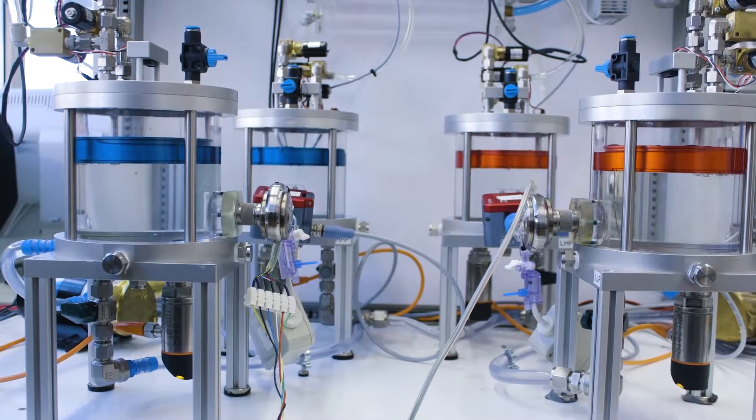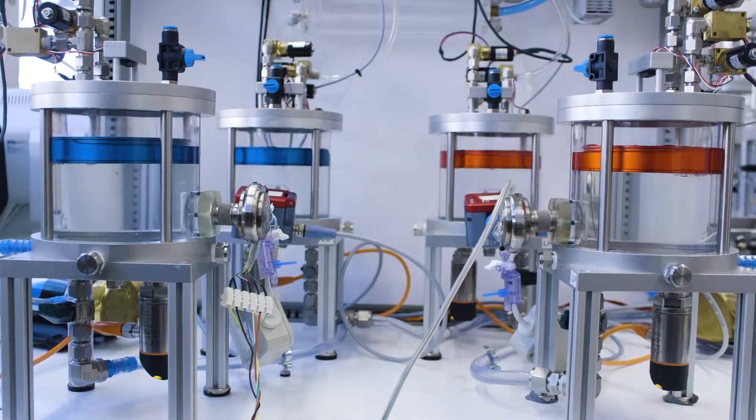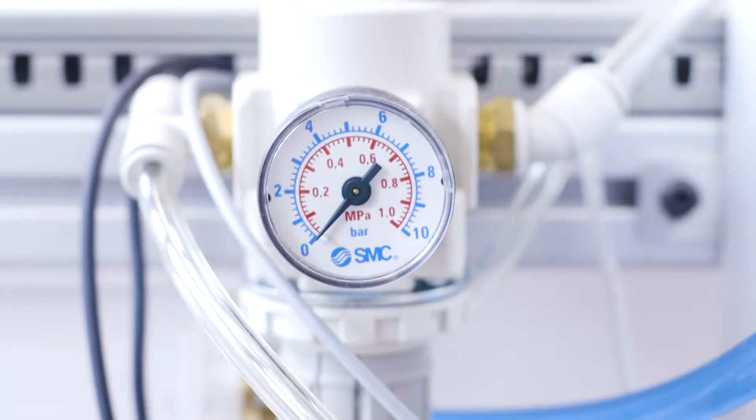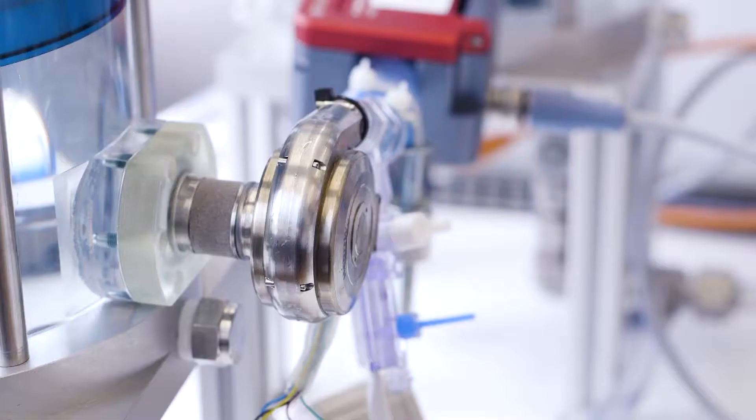Cardiovascular implant development requires testing facilities to assess design criteria of implants under realistic and reproducible conditions. Furthermore, novel control approaches of active implants need to adapt to the varying pathologic conditions and restore the physiologic hemodynamics.